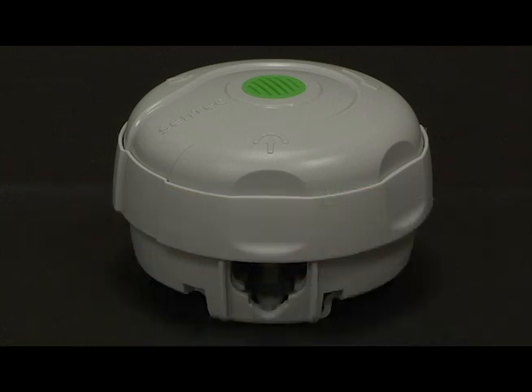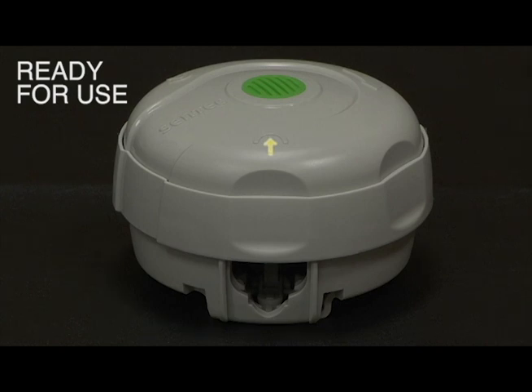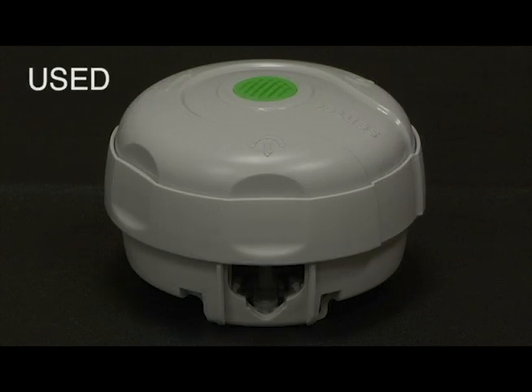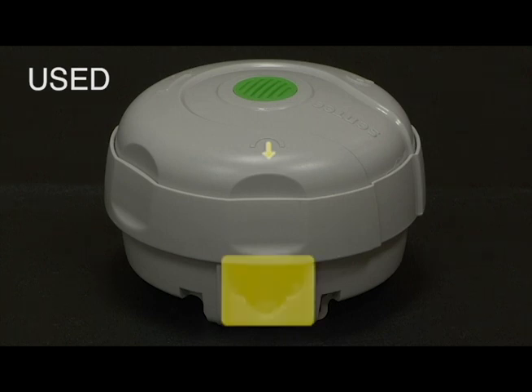A membrane changer is ready for use if the arrow pointed towards the green dot is aligned with the hole in the membrane changer side wall as shown. A membrane changer is used and must be reloaded if the arrow pointing away from the green dot is aligned with the hole in the membrane changer side wall as shown.